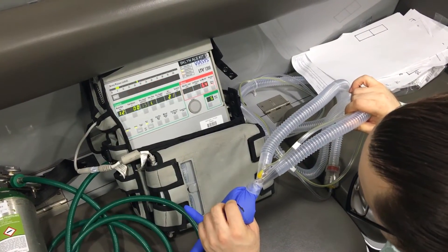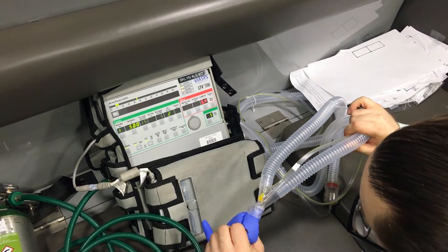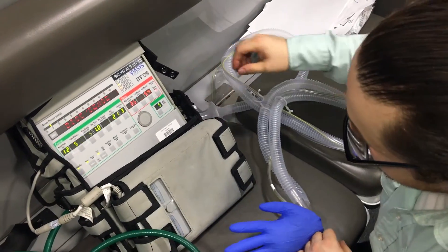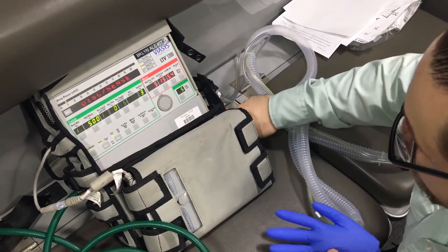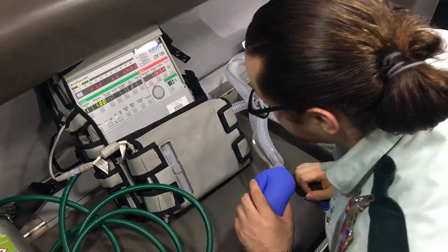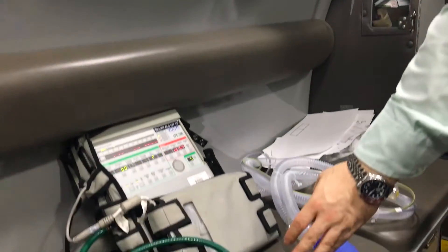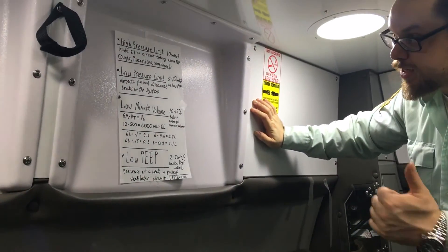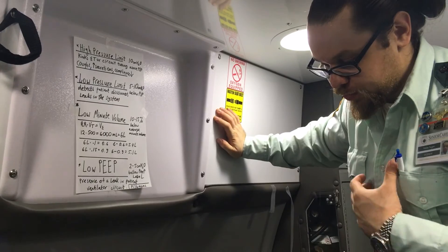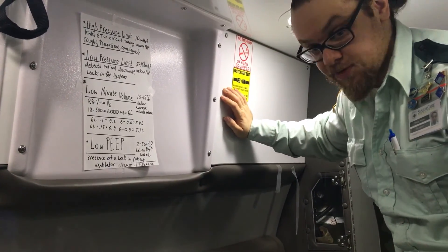Here — high pressure. And I disconnected it — this triggers the low pressure alarm. Low minute ventilation can't really be tested here because we don't have a patient connected who is breathing with the ventilator. But just to keep in mind: high pressure limit is triggered by a kink in the tracheal tube or circuit, cough, secretions, and reduced compliance. Low pressure is some type of a disconnect. And this is how you set your limits on the LTV1200.